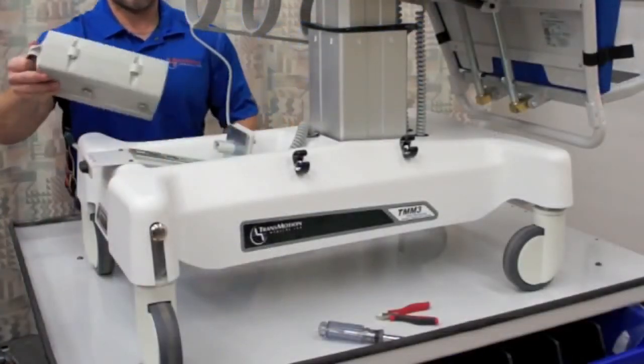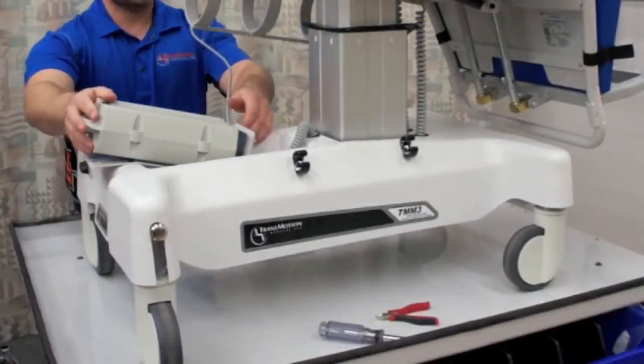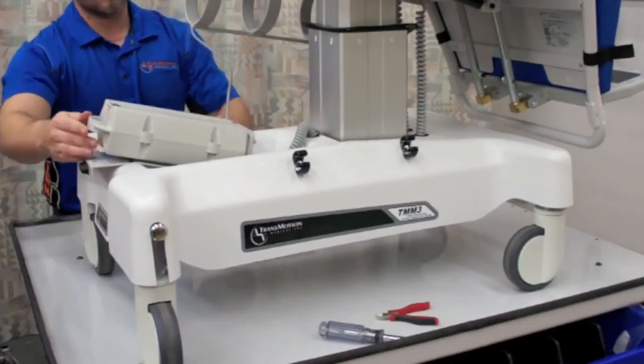Reattach the battery to the top of the base cover. This applies only to the TMM3 Series stretcher chair.